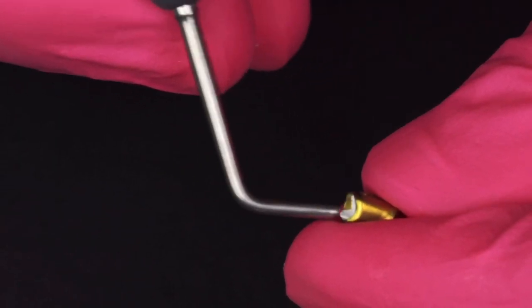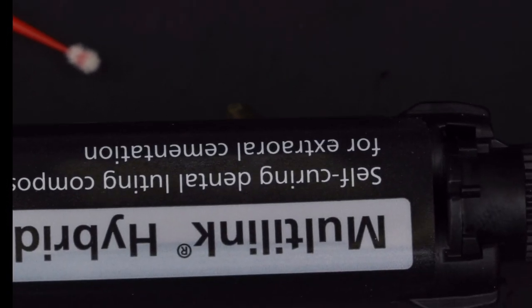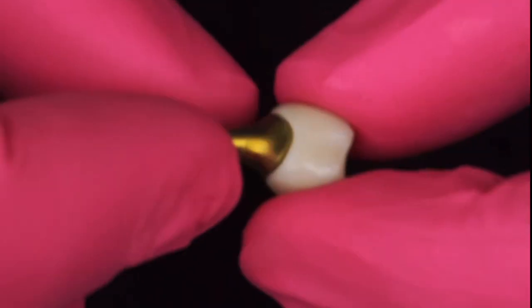These are abutments fabricated by True Abutment. This is all team driven. True Abutment does those designs for me, those screw-mentable designs. I don't have to do anything. My team prints them, my team bonds them to the custom bases here and basically they screw them in the patient's mouth and then we take a check shot and then I torque it. So it's so fun to do. I find that the printed restorations fit really well. You don't have to worry about things like over milling or anything like that.